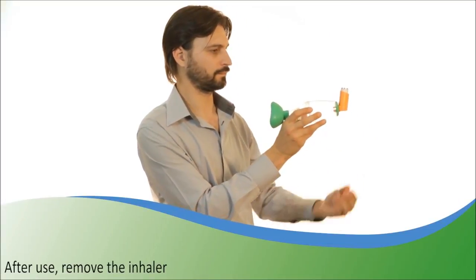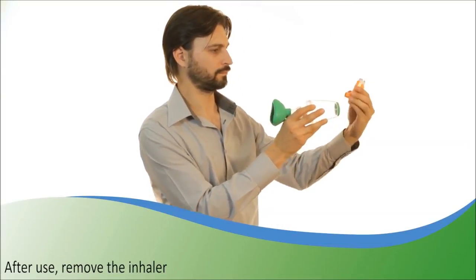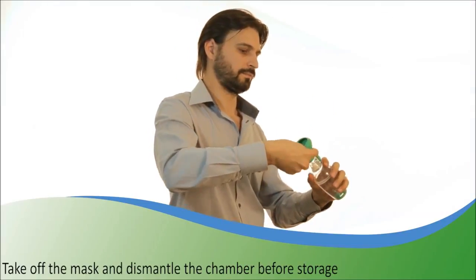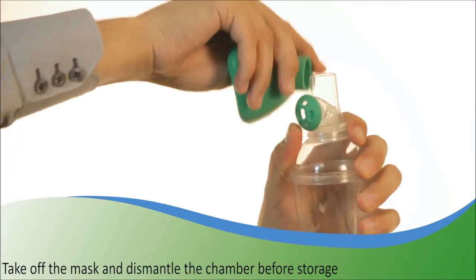After use, remove the metered dose inhaler and put its cap back on. You can store Tipshaler in its box after removing the mask from the chamber.